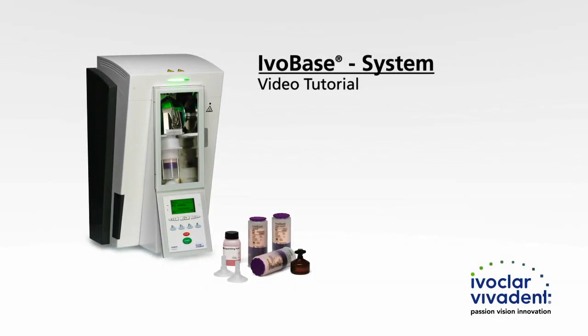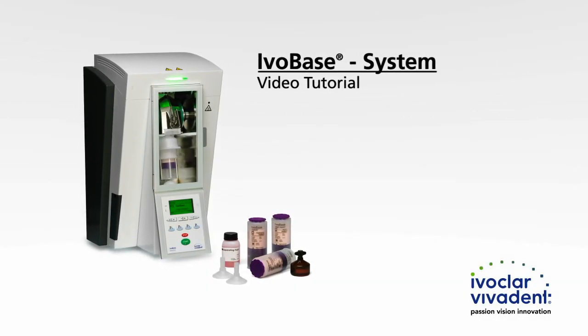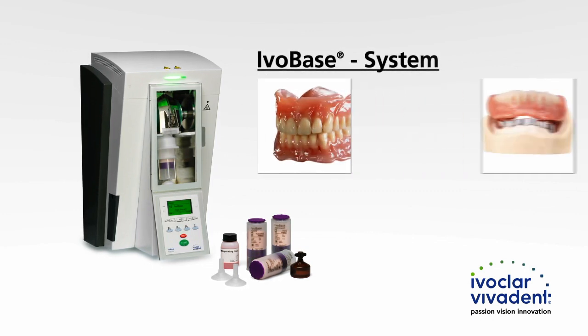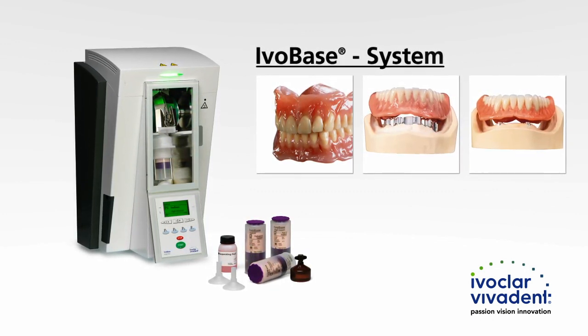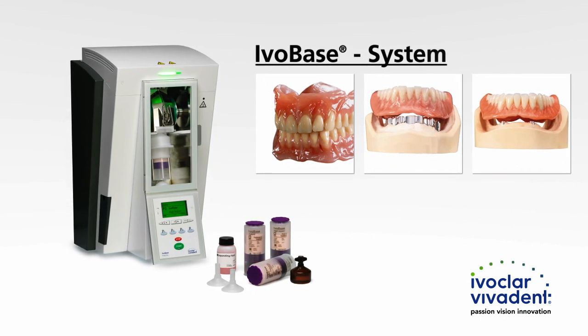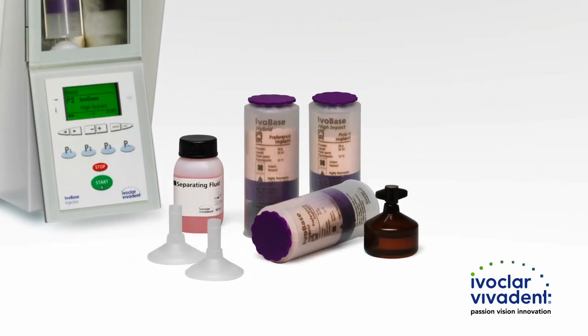Welcome to the introduction to the IvoBase system from Ivoclar Vivadent. The IvoBase system allows you to fabricate highly compatible, high-quality dentures in a fully automated and shrinkage-compensating process.